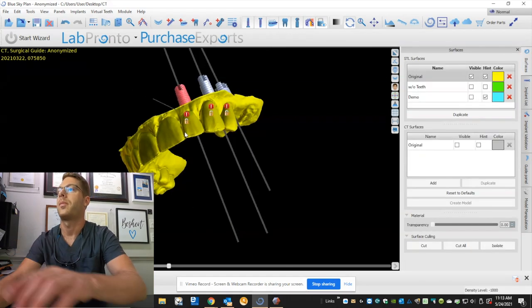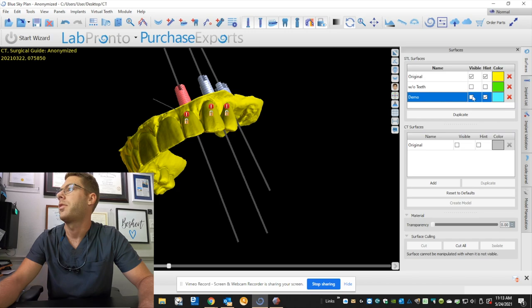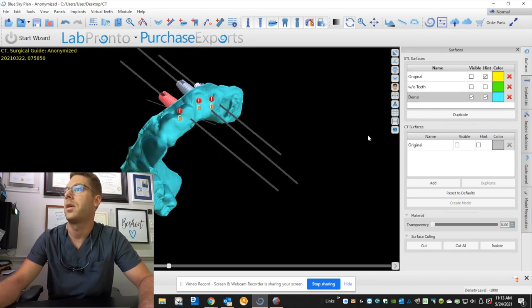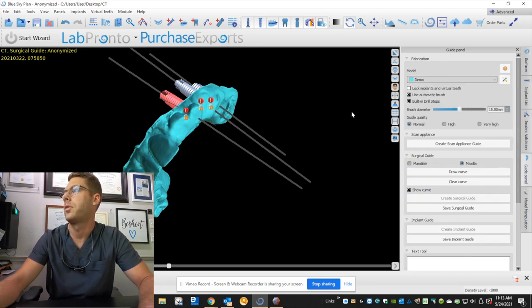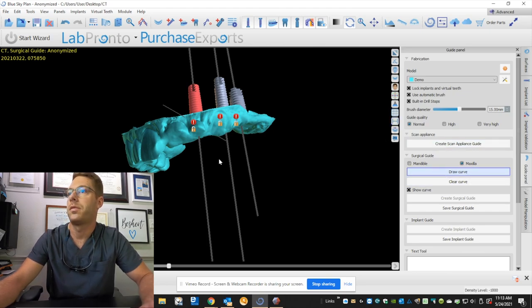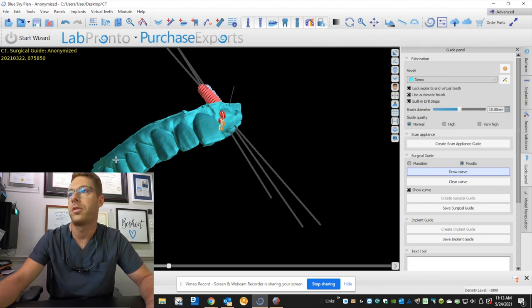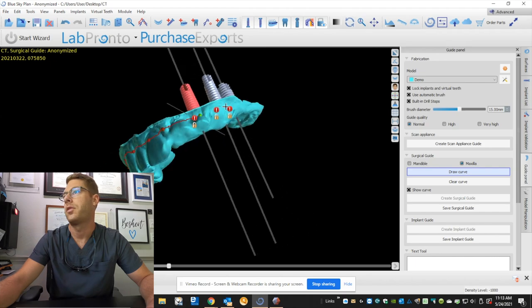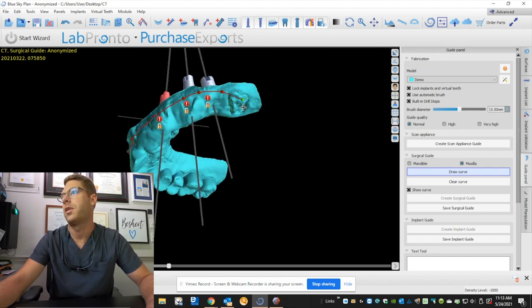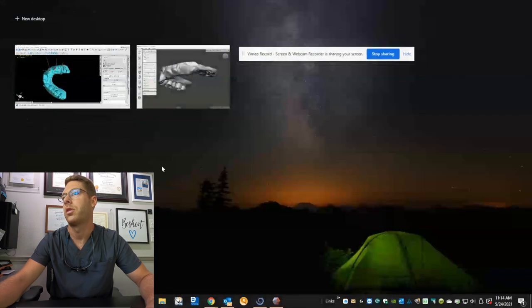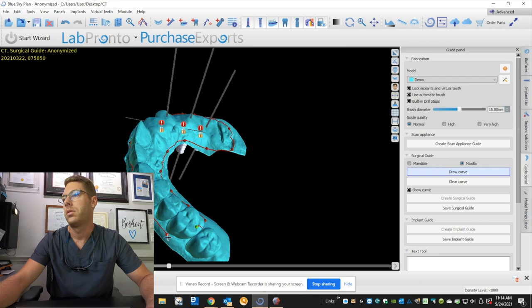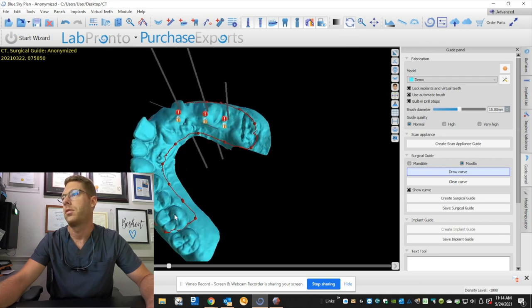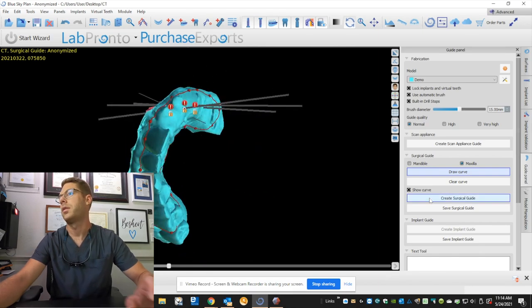So since I'm using a model, let's use the model that I cut the teeth off of, which is this one, and design our surgical guide. So here we have our surgical guide. I always switch to the advanced. I lock all the implants in the virtual teeth and draw my curve. So as I'm doing this, I hold down shift. I always go to the contralateral, most posterior tooth. And this is going to be the outline of where our surgical guide is going to sit. And you want to get this right here because it's difficult to come back and edit. You have to start over and redraw your curve. So I always make sure these look nice. Create surgical guide.